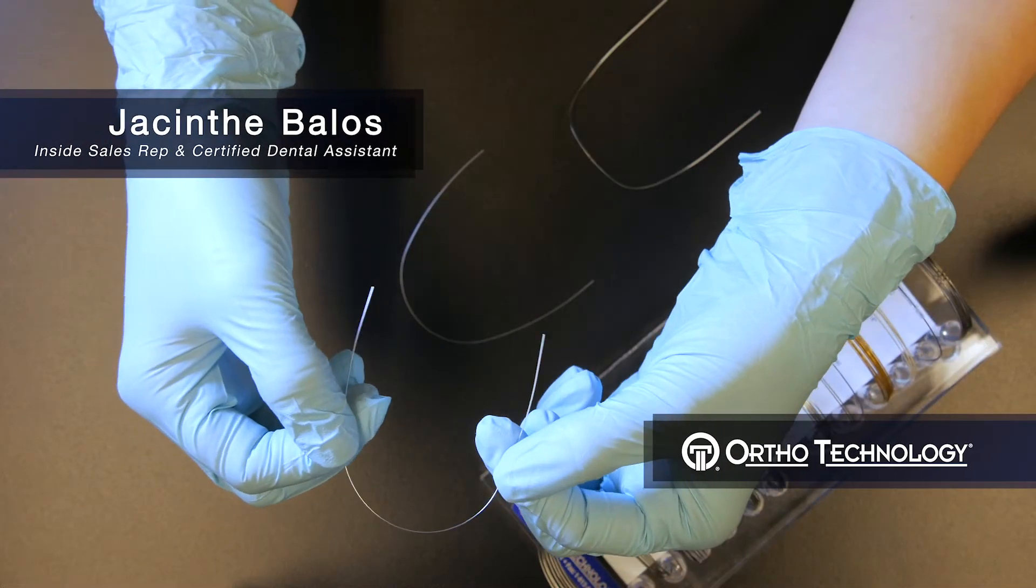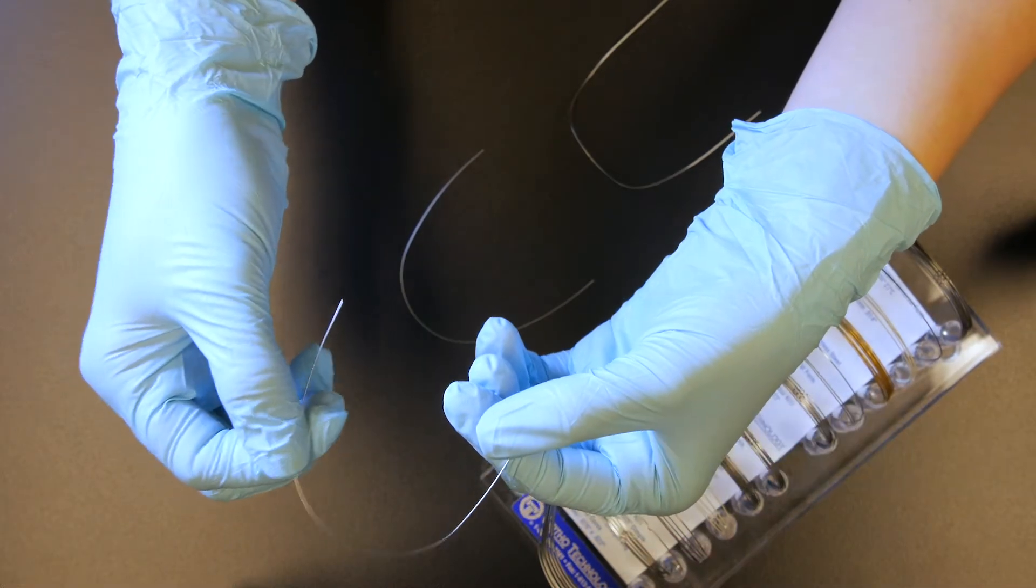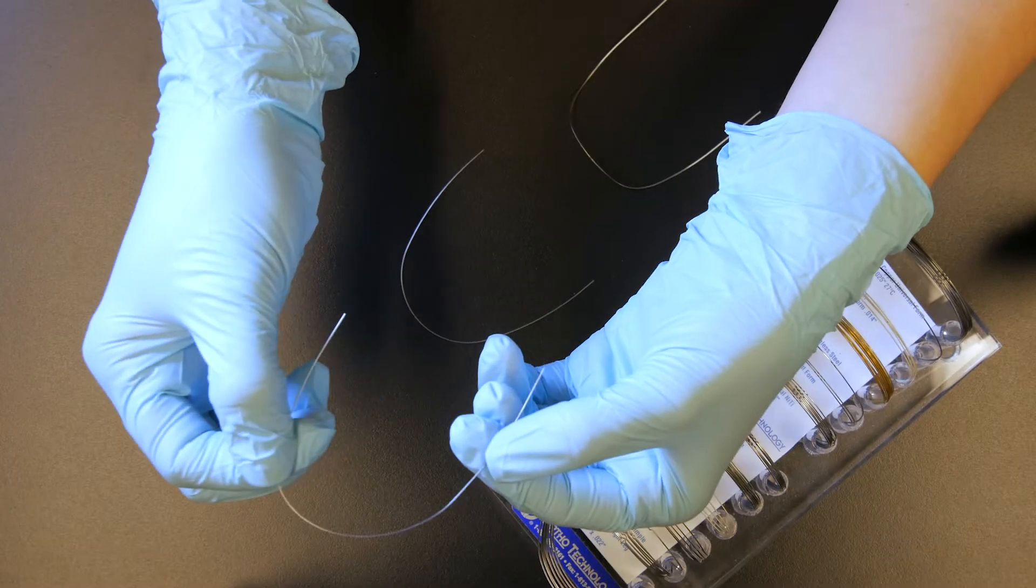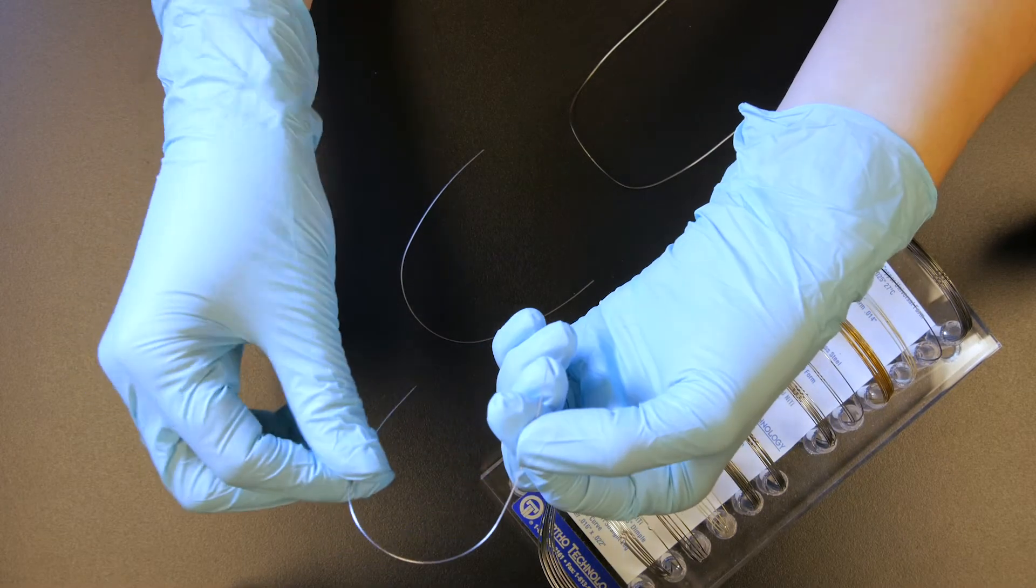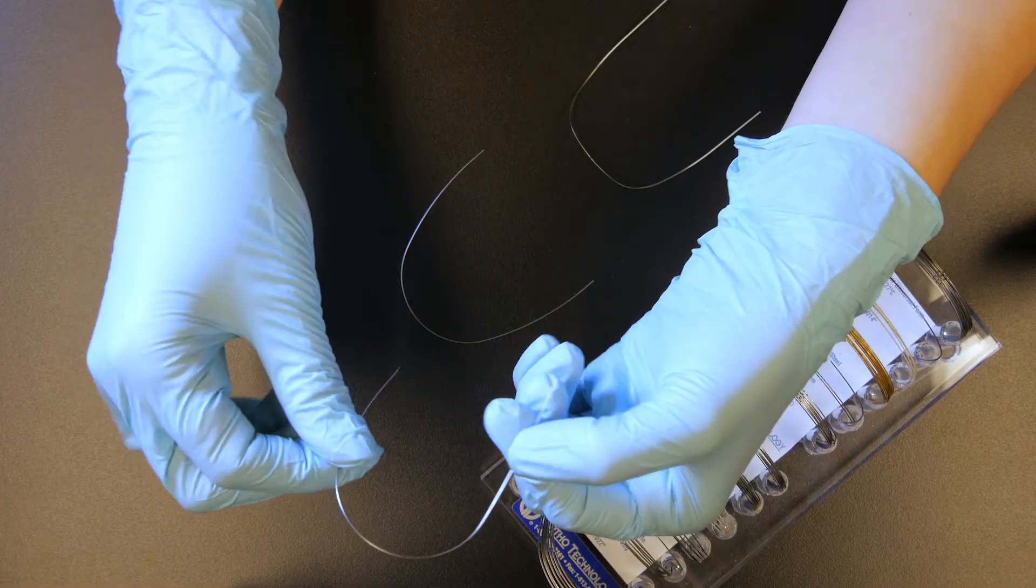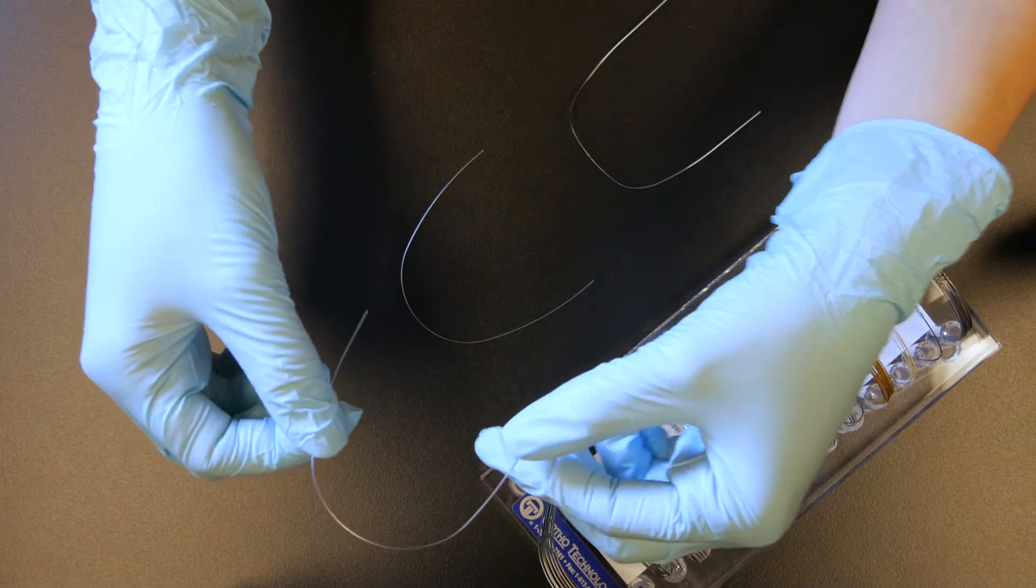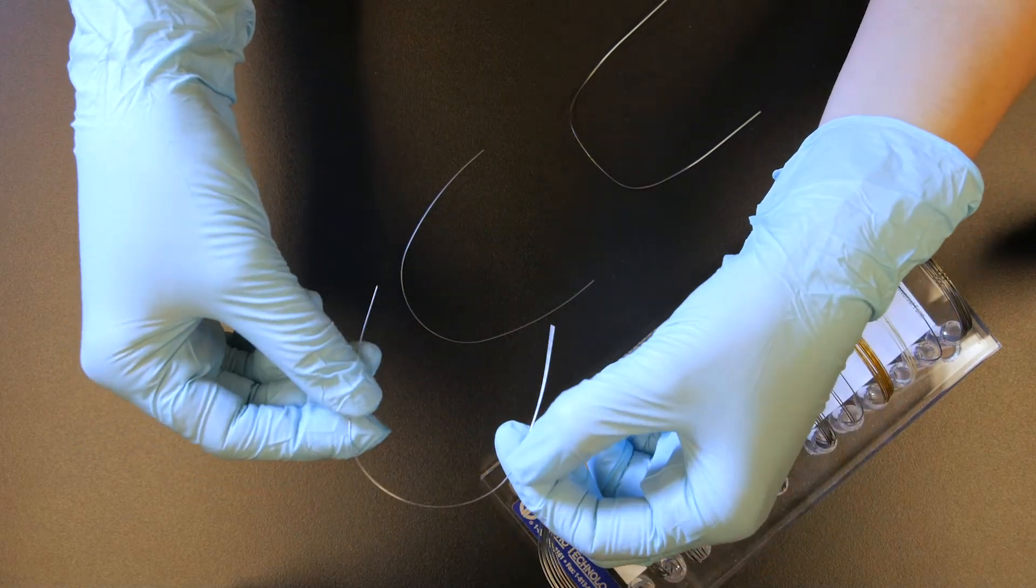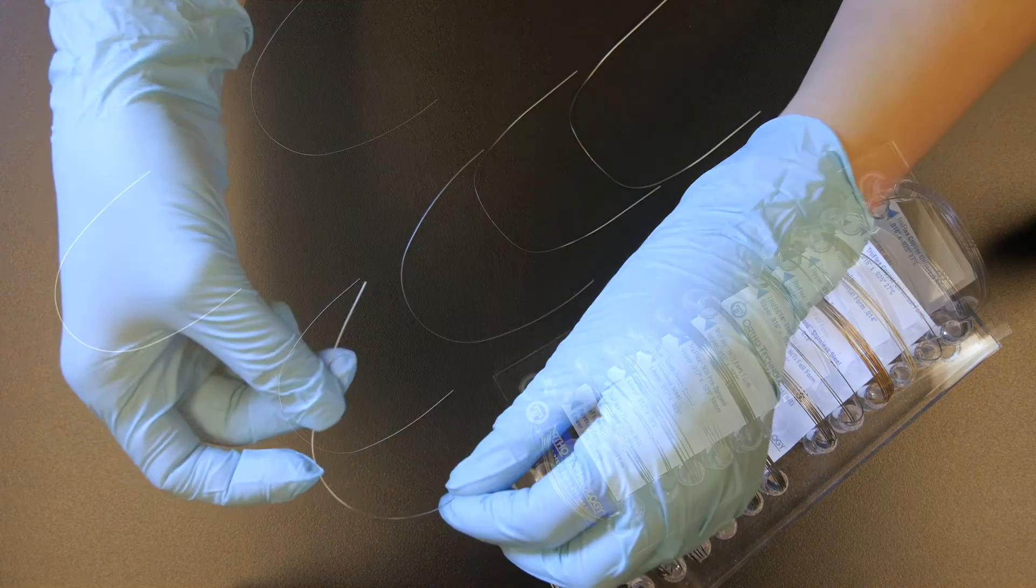This is our TruFlex Nickel Titanium Arch Wire. It is made in the USA and has a bright, smooth finish. It is one of our top-selling products at Ortho Technology and has excellent rebound properties. We believe doctors will like the consistent shape and resistance to deformation that this wire provides.